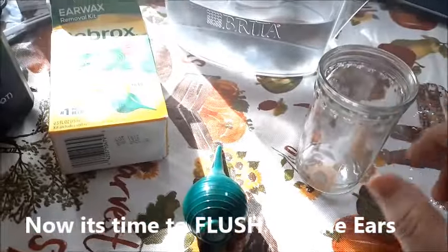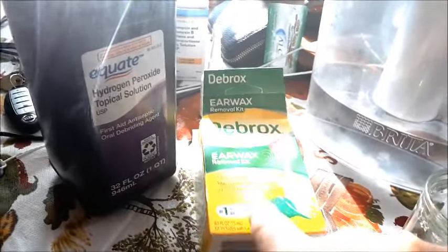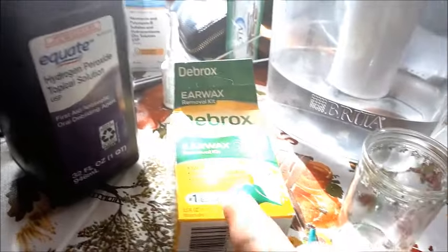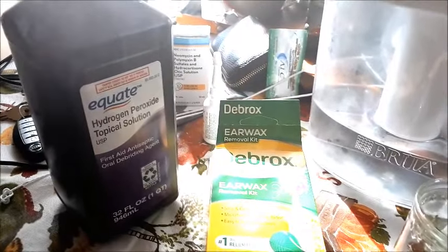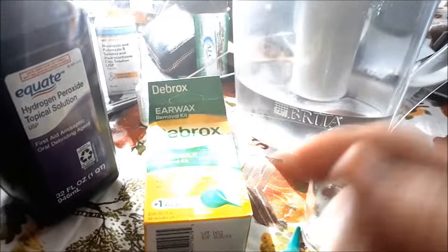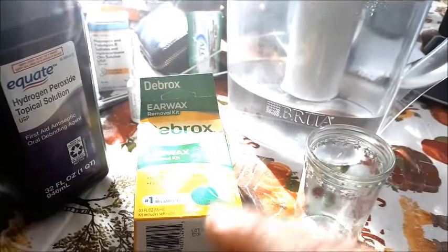Then I do it the second day and the third day. After three days, you see exactly how to use the Debrox. Now a fun little tip: instead of just using distilled, tap, or spring water, we're going to do a mixture of water and hydrogen peroxide. I had severe earwax blockage in my left ear — I woke up one morning and could not hear at all. I went to the ear doctor and she took 30 minutes to get all the earwax out of both ears using a combination pump of hydrogen peroxide and water forced into my ear at strong pressure, along with a little scalpel. I'll show you a picture of what that looks like.